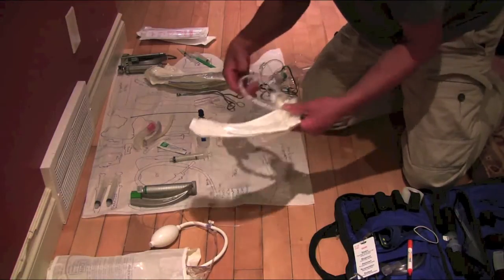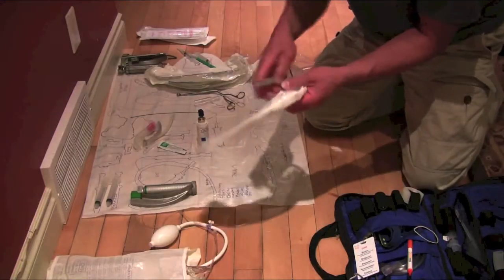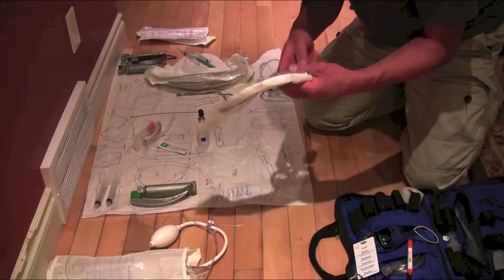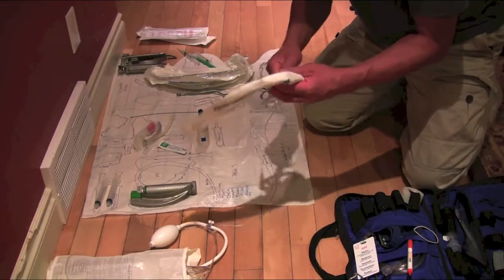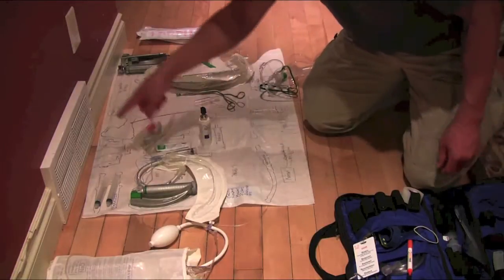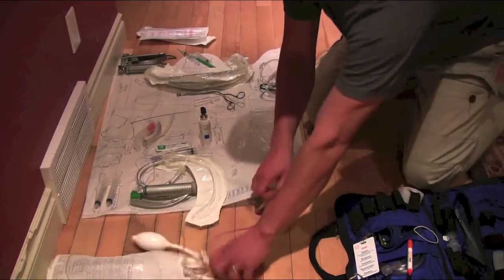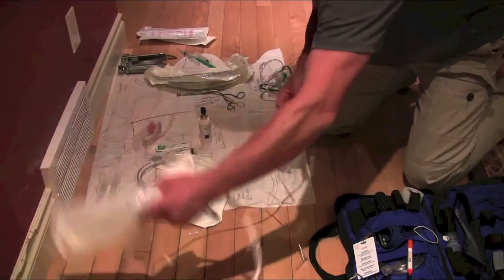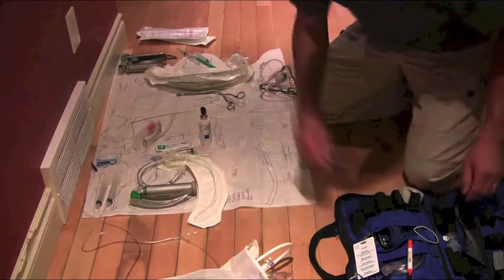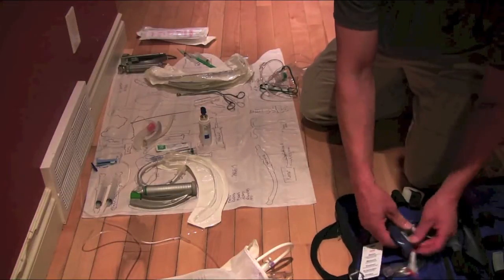Attach my syringe, check my cuff. That's good to go. And my IV set up is set up already, fluid bolusing patient. My partner's already got an IV in. Get my end-tidal CO2 and tube tie ready to go.